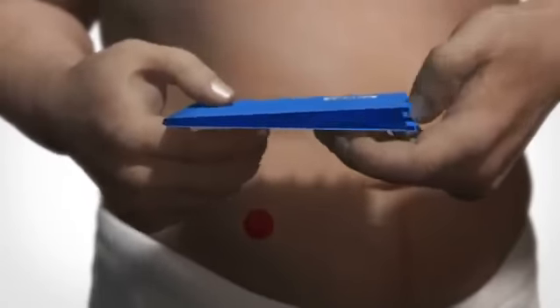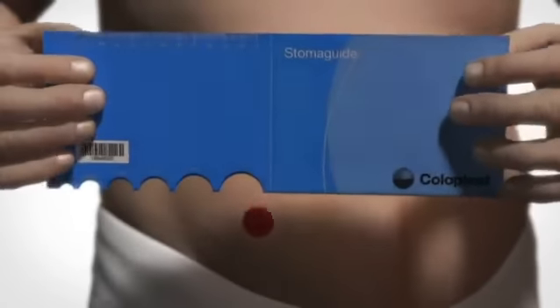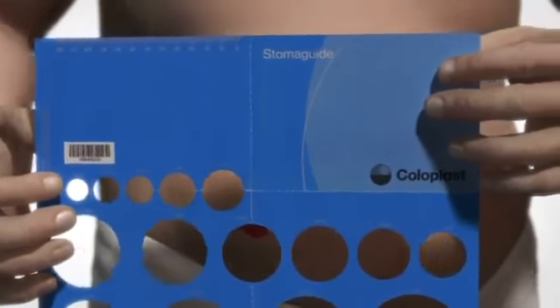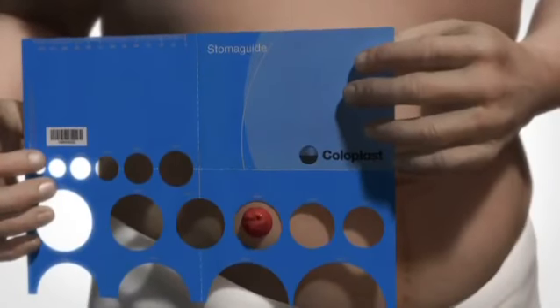To measure the diameter of your stoma, use the stoma guide. Try the different pre-cut holes in the stoma guide to find the hole size that best fits your stoma. If the hole is too big, the skin will not be protected properly.